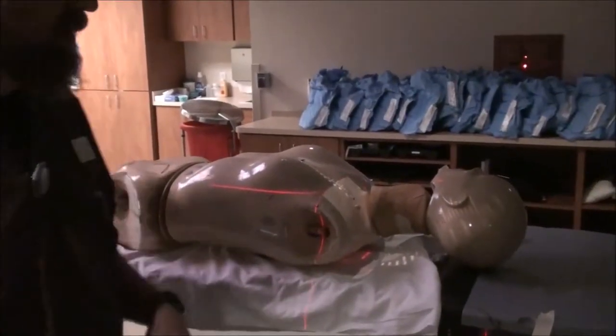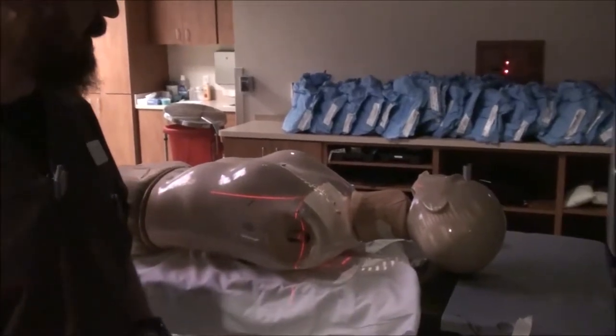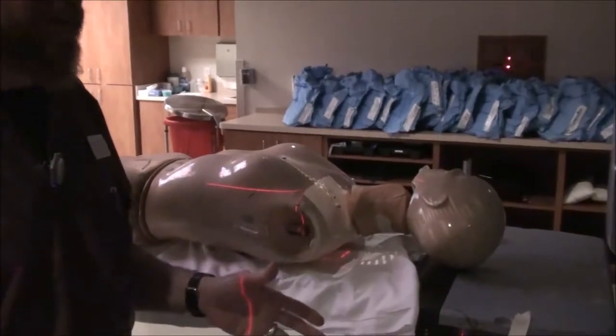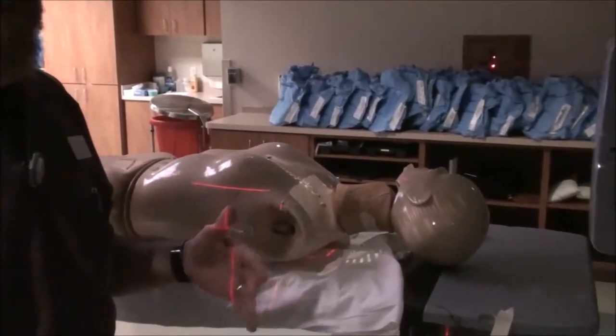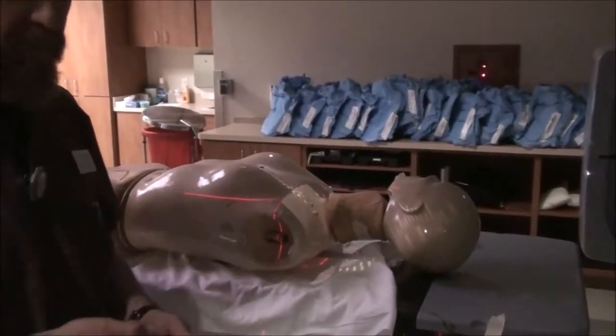For part two of breast simulation, we covered in the last video at about the 15 or 16 minute mark, we started talking about three-field breast setups. I kind of glossed over most of it — it seemed like it was an afterthought — so we're going to do this all together in its own little video.